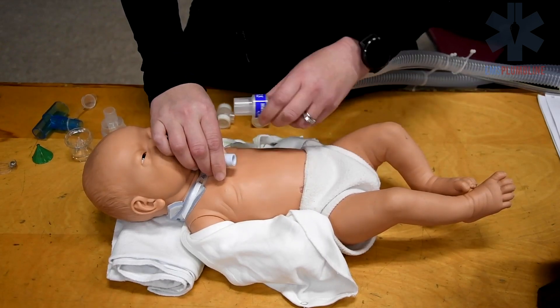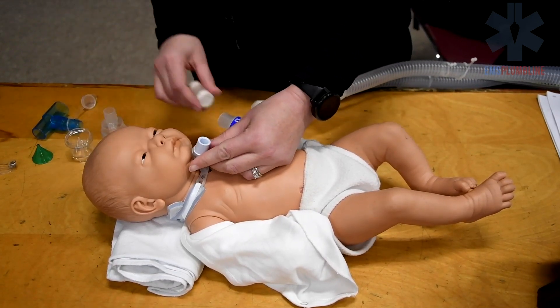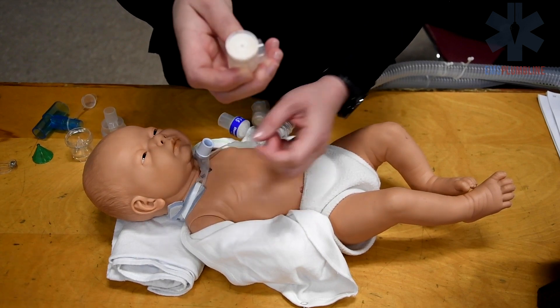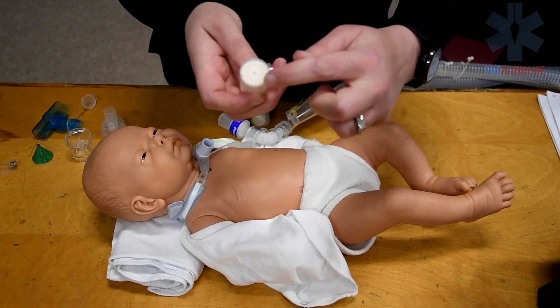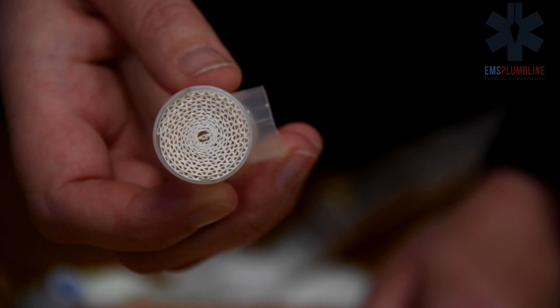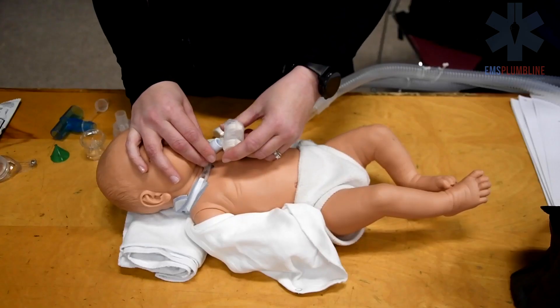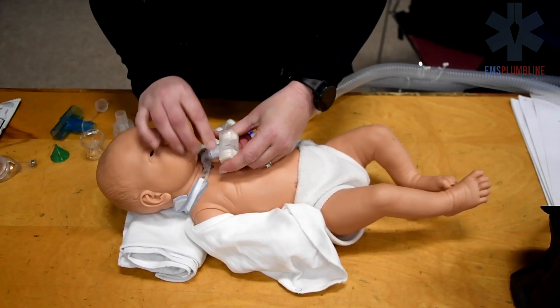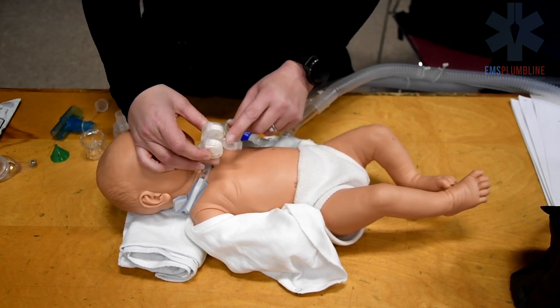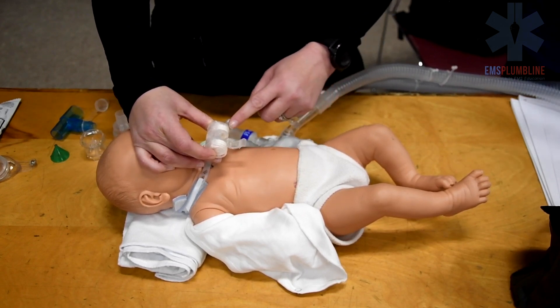There are a few different ways to provide humidification for a tracheostomy. This is an HME, or heat moisture exchanger. Another name for this is a nose, as it acts like the patient's nose to filter and humidify the air. Some HMEs allow ports for suctioning or providing oxygen.